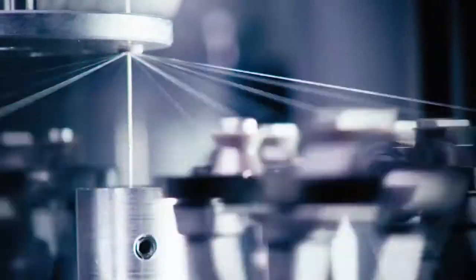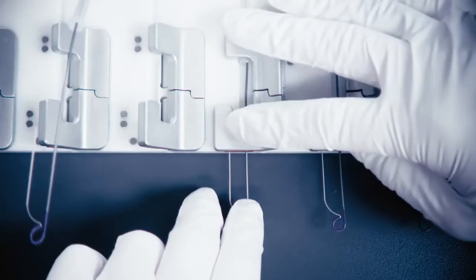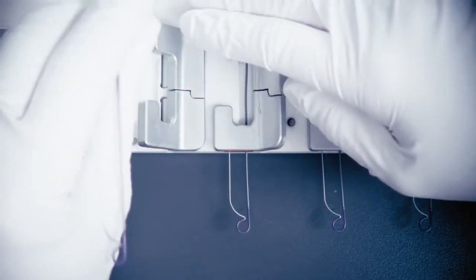Further enhancing your ability to access challenging treatment sites are a variety of tip shapes that allow for flexibility and efficiency.